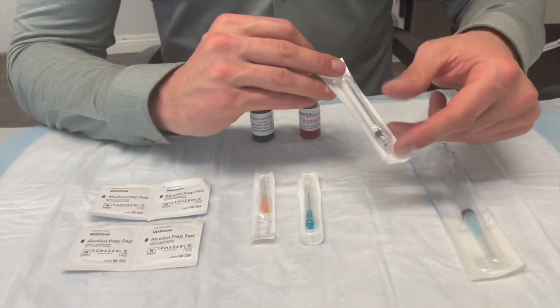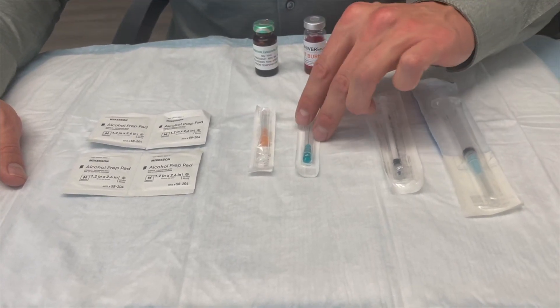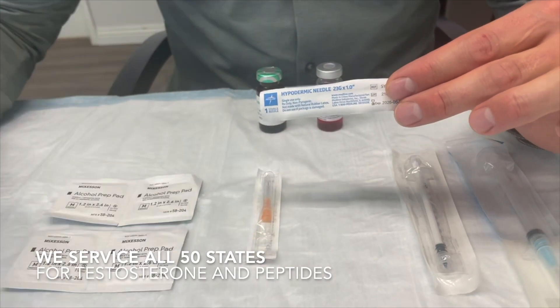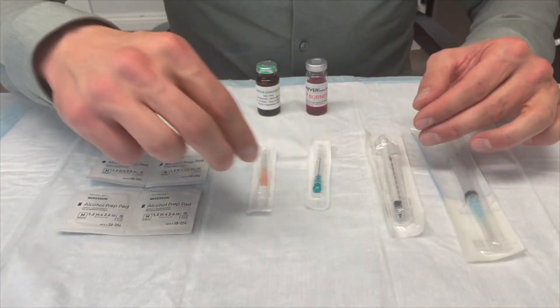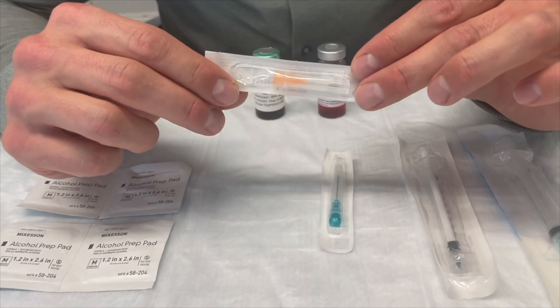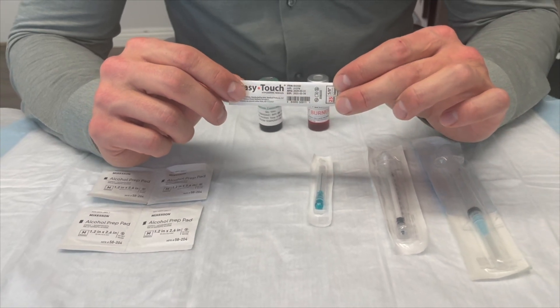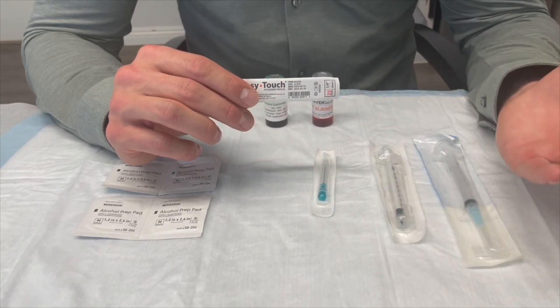Depending upon your unique dose for your treatment, one of these types of syringes will come in the mail to you. Next we have two types of needles. The first is going to be a one inch long needle, typically a larger gauge between 18 up to 23 gauge. This needle is used for drawing up the medication. A lot of these medications live inside of an oil, so it requires a wider needle to draw them into the syringe. The next needle is going to be a five-eighths inch 25 gauge needle. This needle is typically used for injecting — you can do intramuscularly or subcutaneously with this needle. Because this needle is so much smaller there is some pressure needed to get all the medication out of the syringe, but the benefit to our patients is you barely feel the needle go inside of the muscle.